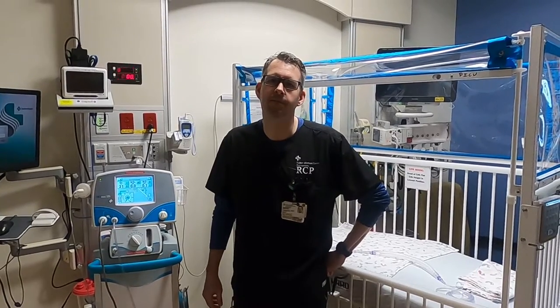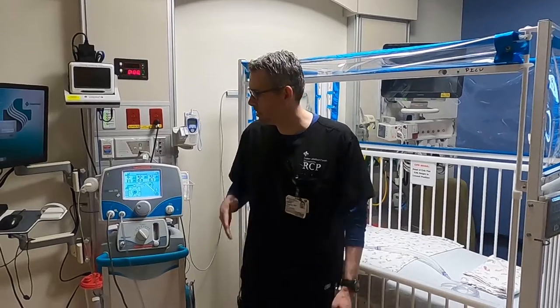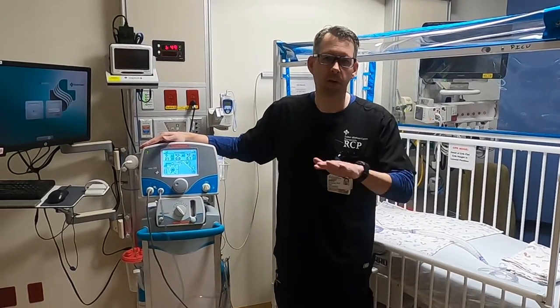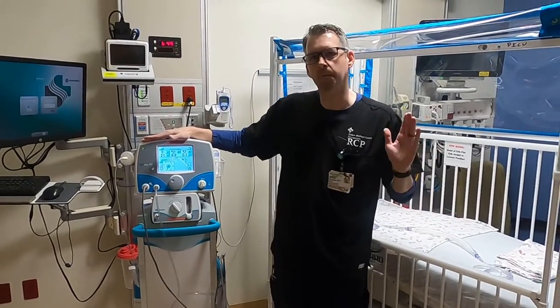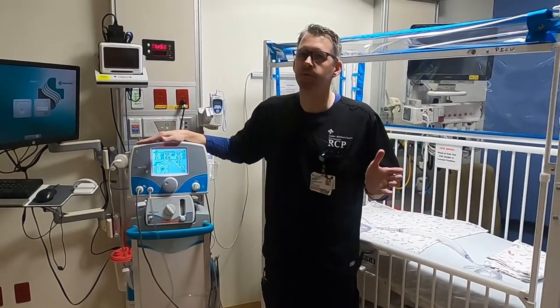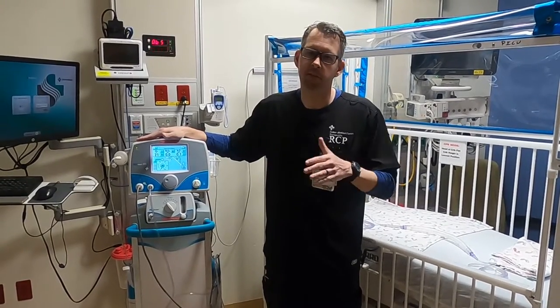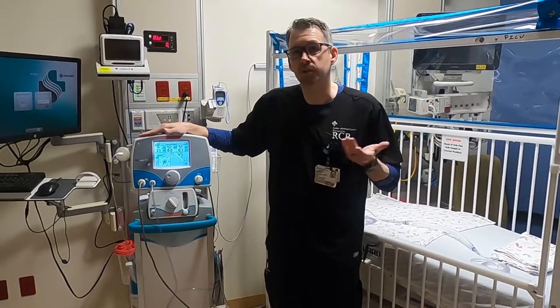Hello. It's Mike Dempsey from Sutter Medical Center Respiratory Therapy. Today we're going to talk about inhaled nitric oxide — what it is and how to set it up on all of our patient populations. Here at Sutter we use it on our neonates, our pediatrics, and all of our adult patients. It is used for patients who have pulmonary hypertension. It's inhaled into the lungs and helps dilate the smooth muscle in the capillary beds and improve oxygen exchange to the patient.